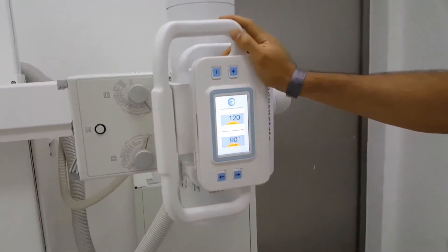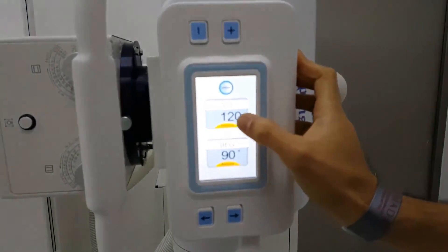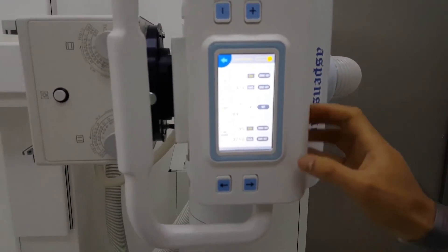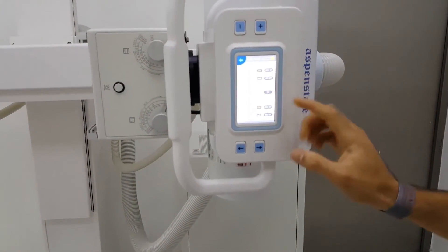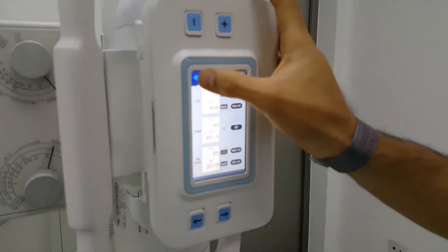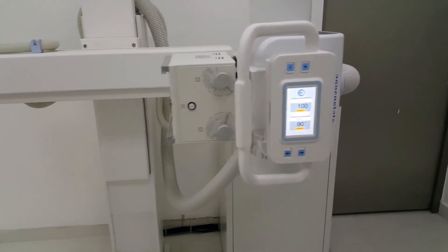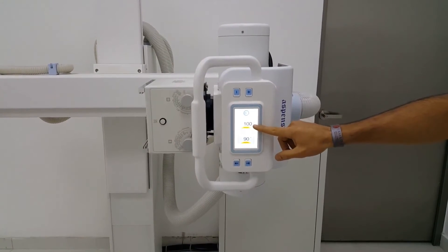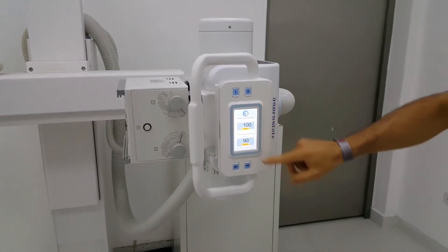For accessing the technical mode, you just click like this. This will be the default setting. Also, if you click 'origin,' the system will automatically go to an SID of 100 and 90 degrees rotation — this is the pre-set.